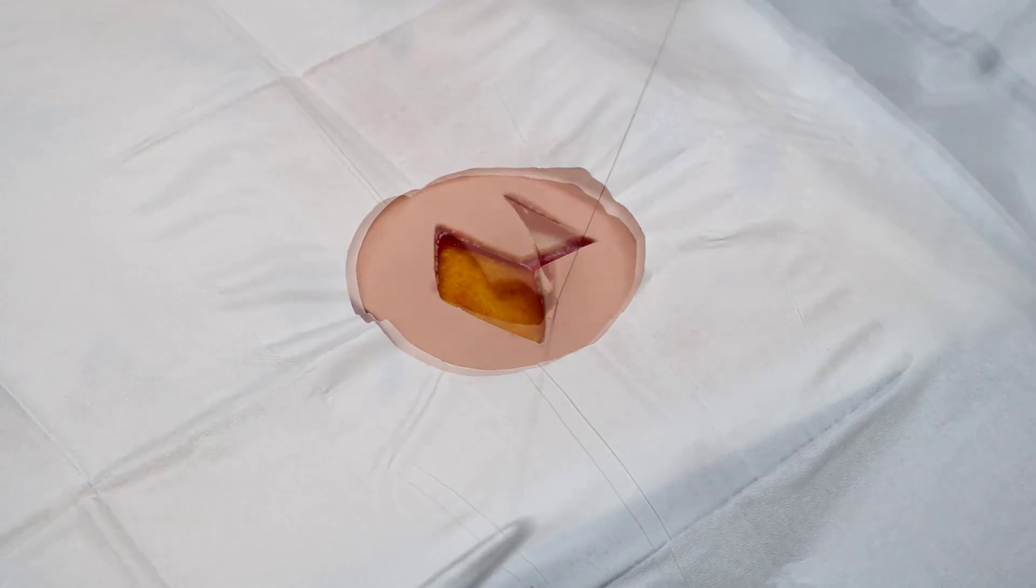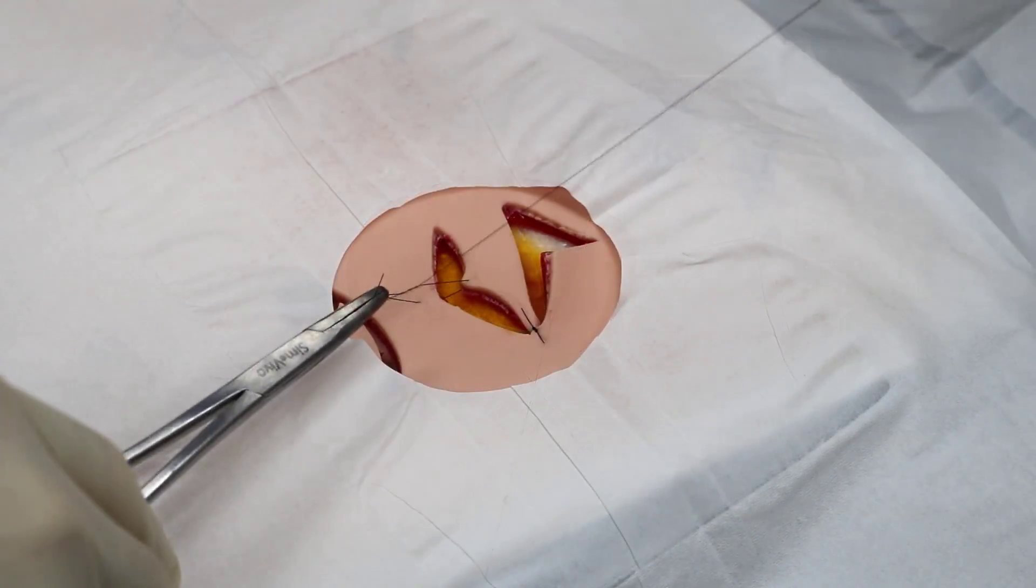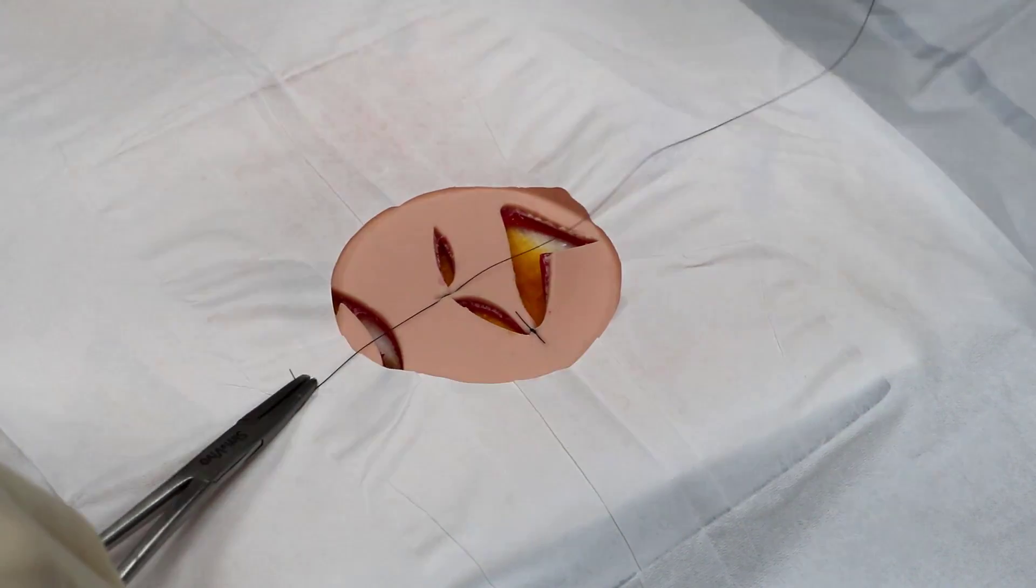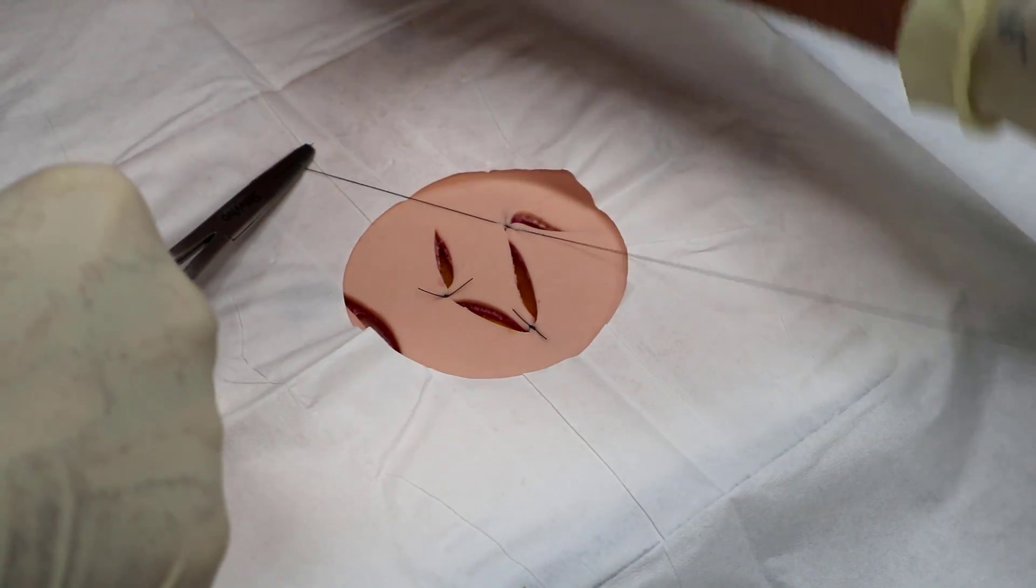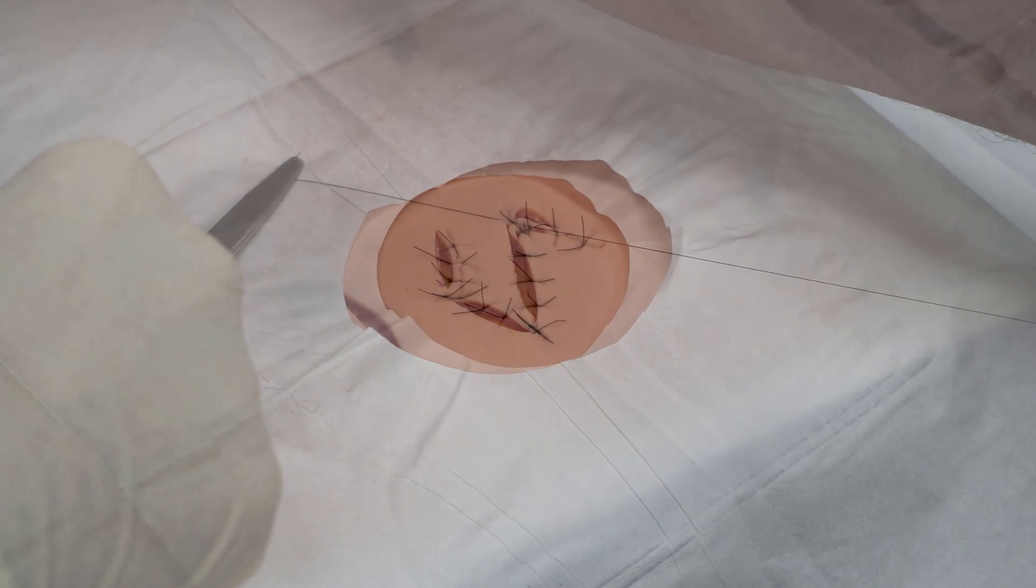Whether you're an advanced surgical learner or want to practice a complex procedure, this high-fidelity, low-cost solution is perfect for developing and refining your skills.